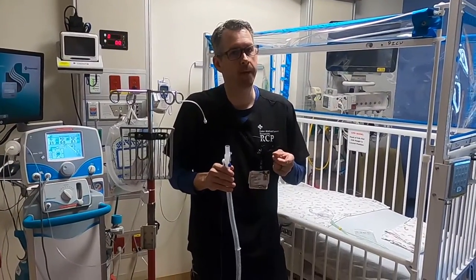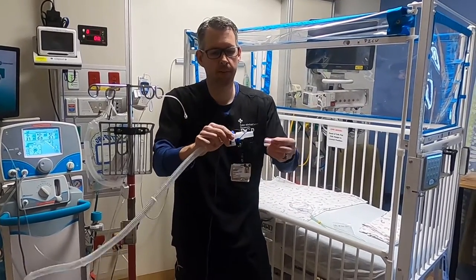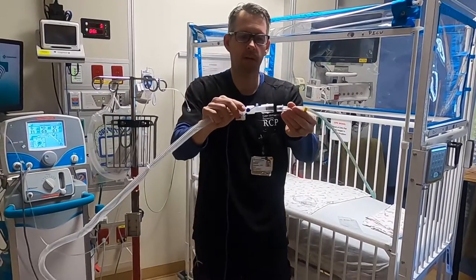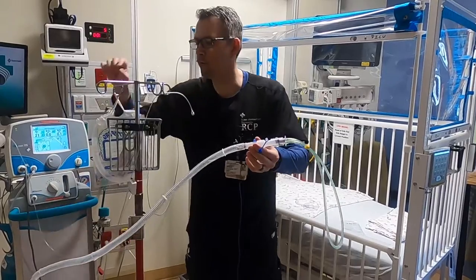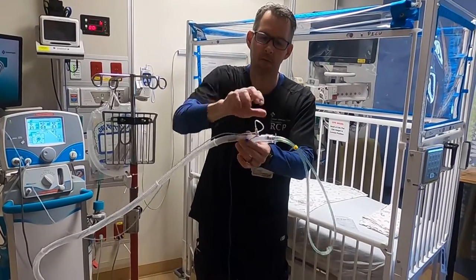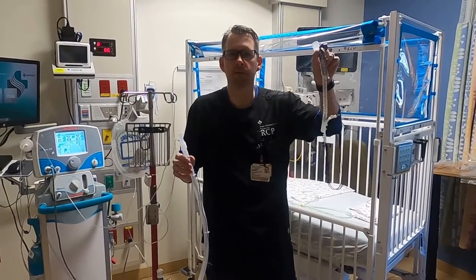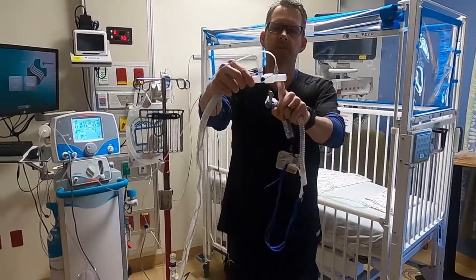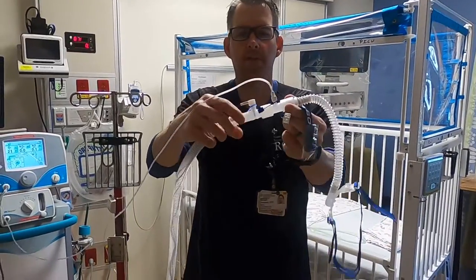Next is the RAM cannula, which we use a lot in PICU. You have your sample adapter — 15mm — and your cannula goes right there. A very simple setup, and then your sample line in the same place. Last but not least, the adult high flow system connection. All you need is your sample adapter; it fits right on there perfectly. Very easy.